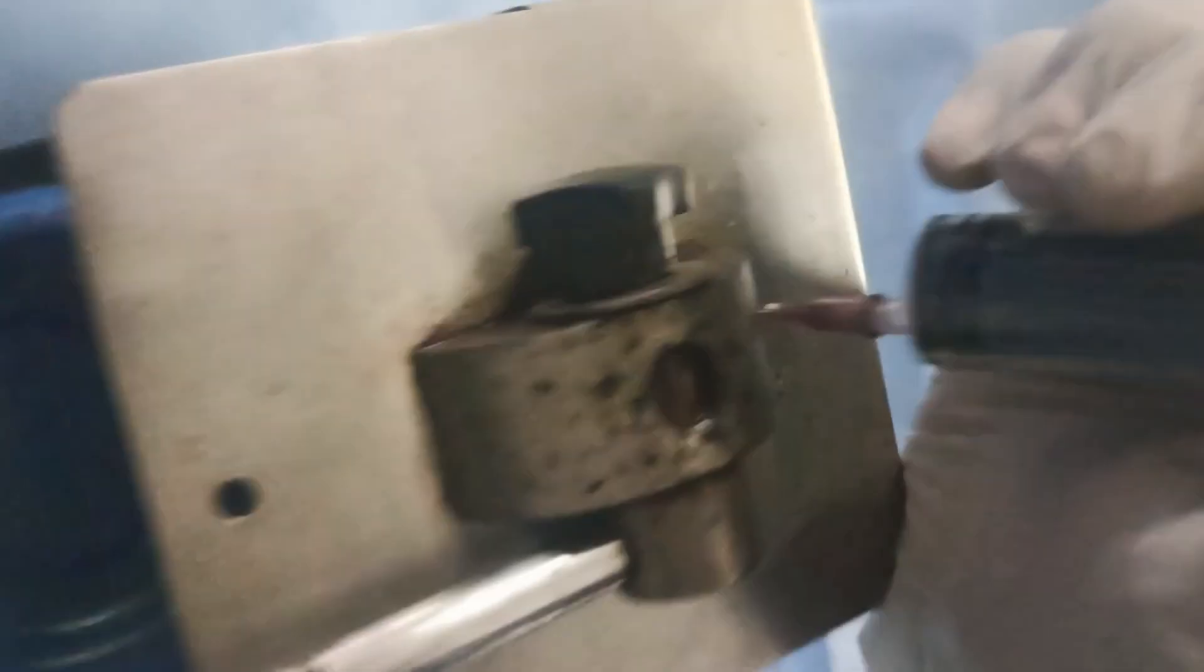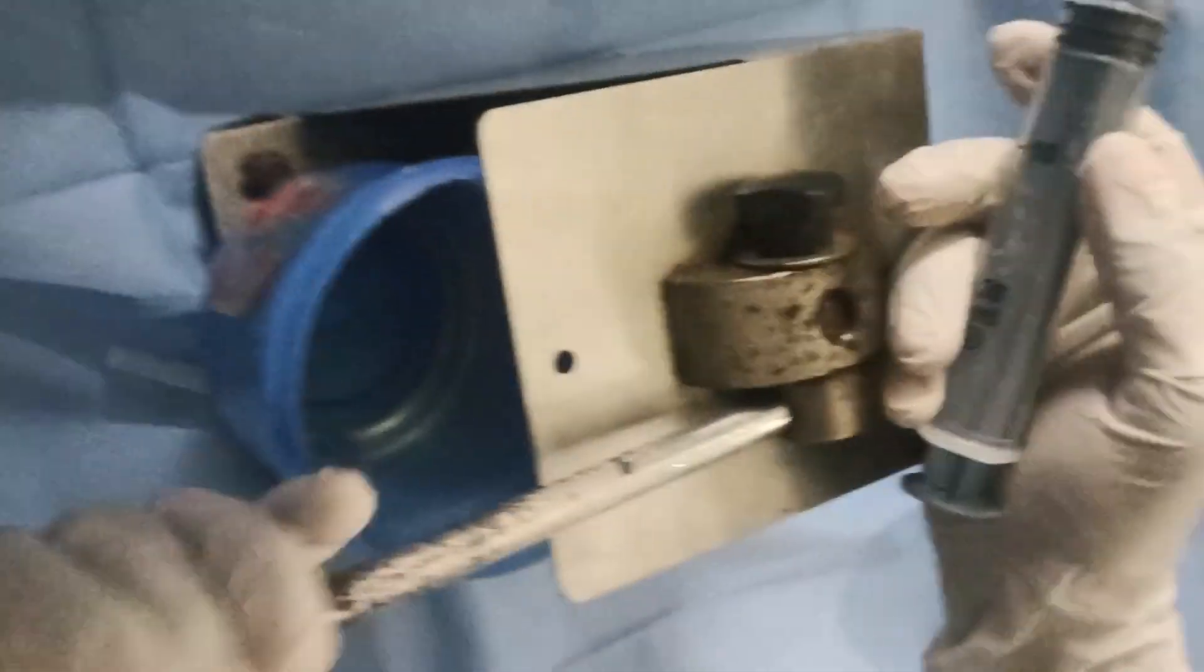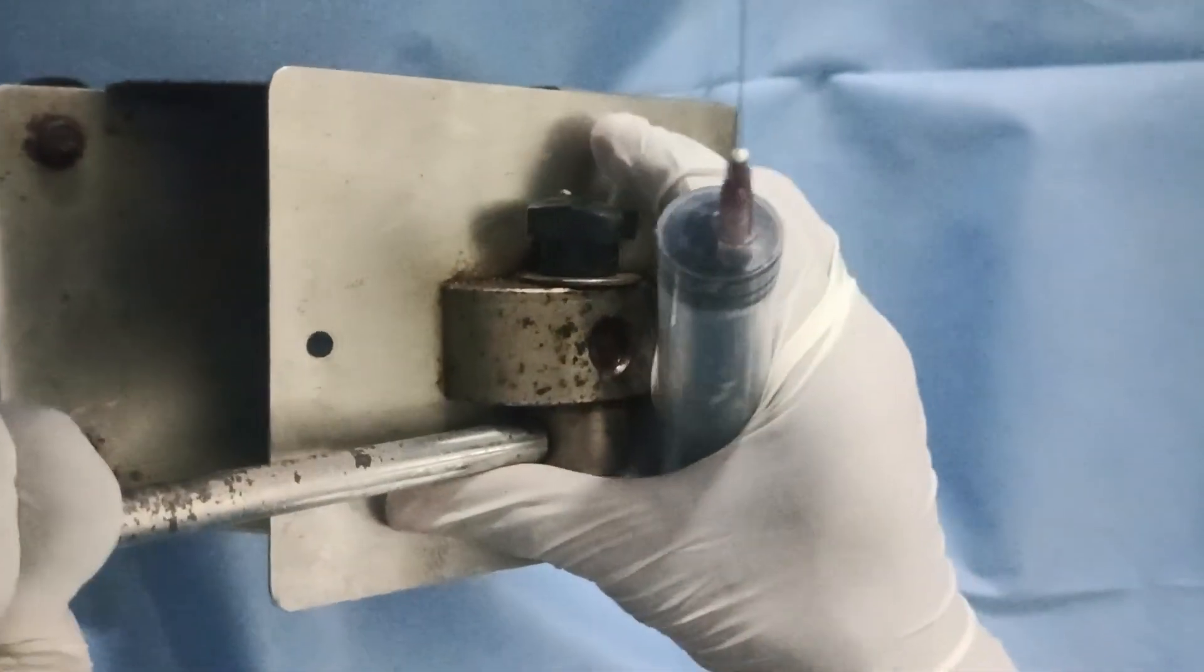Now friends, after using the 20ml syringe, I will check the needle. Friends, we have to check the needle after cutting.